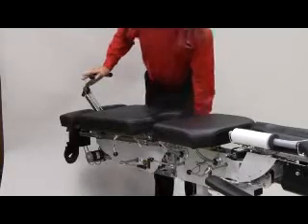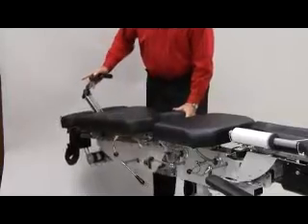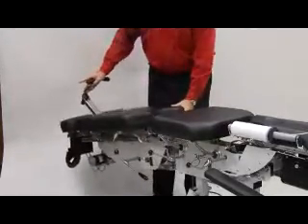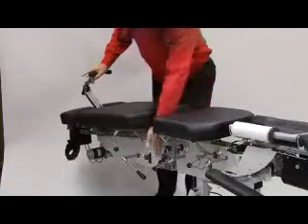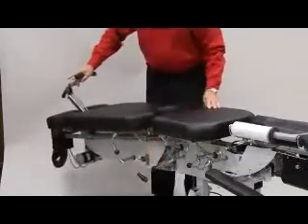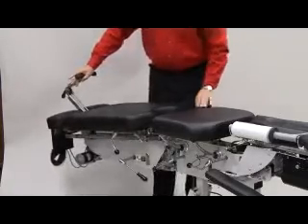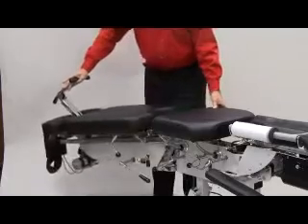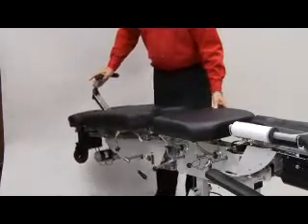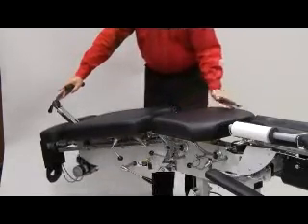This handle is a flexion lock. As you can see, the table will go into flexion and extension quite easily. Also standard is the locking lateral system, which allows the table to go sideways, combined with the flexion distraction handle that provides circumduction as a standard feature of the table. It can be locked in any position for other protocols.